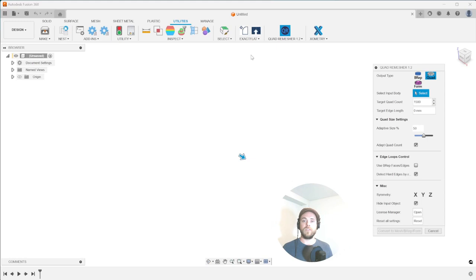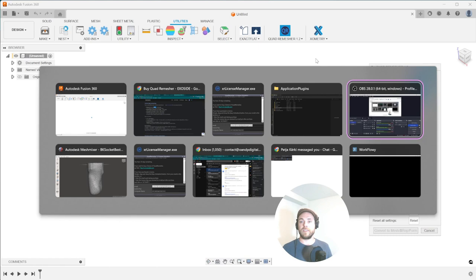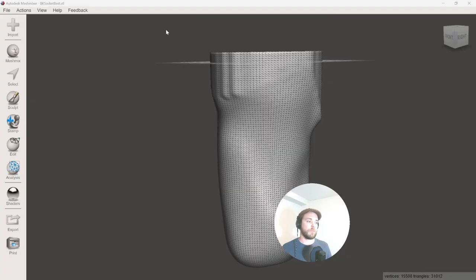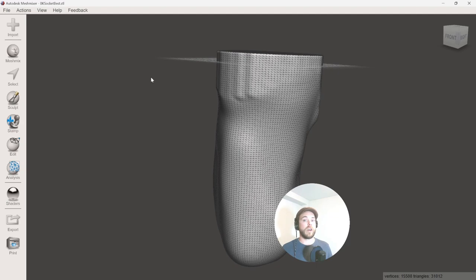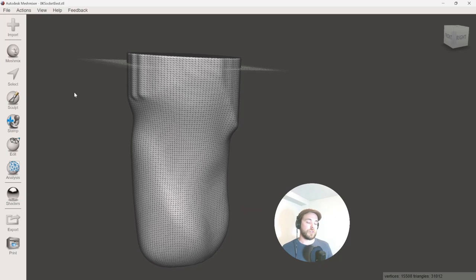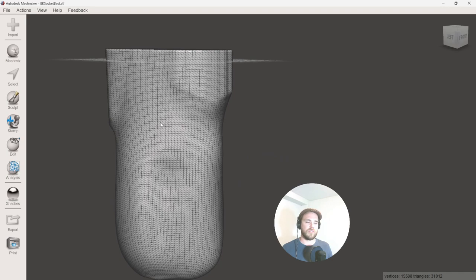So once you do that, let's now start off by importing a mesh and doing this quad remeshing exercise. Now, when I've been auditing this, I've had to qualify some of these scans and you do need to prep your scan somewhat, whether that's in your modification software or it's in a free tool like MeshMixer. It's up to you. I'm going to show you an example of what you need to do and what you need to make sure is available in the mesh so that you get a good result.